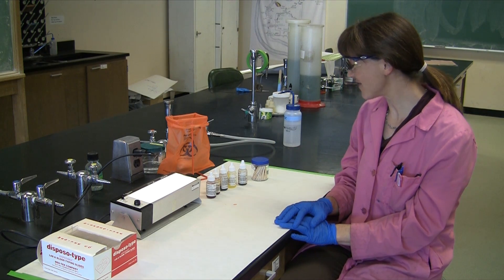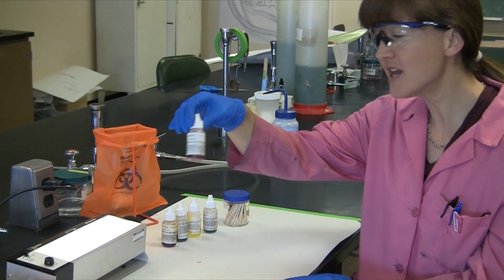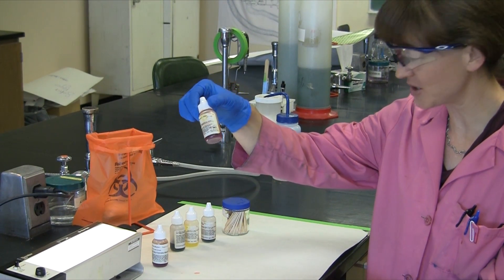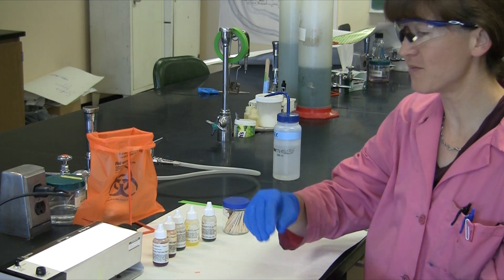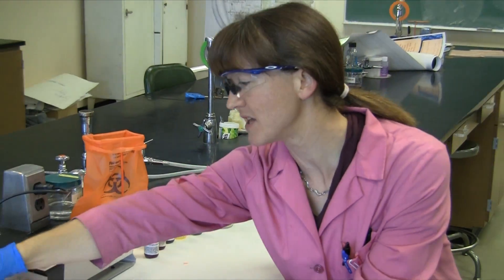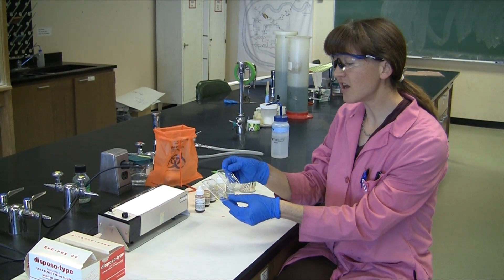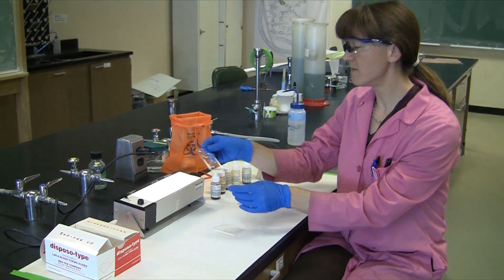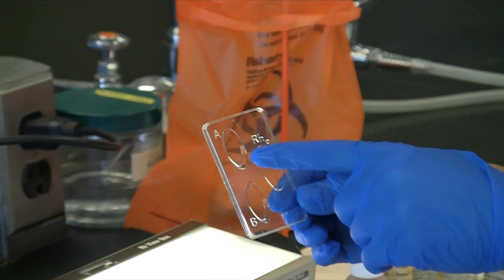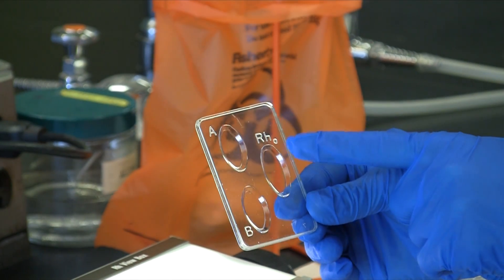So we have a couple of different samples here. This first one we're calling patient 1, and patient 1 has a different type of blood than patient 2. We're going to do two different blood typing trays — that's the first thing you want to grab. You'll notice on these trays there are actually three different wells: a well labeled A, a well labeled B, and a well labeled RH.